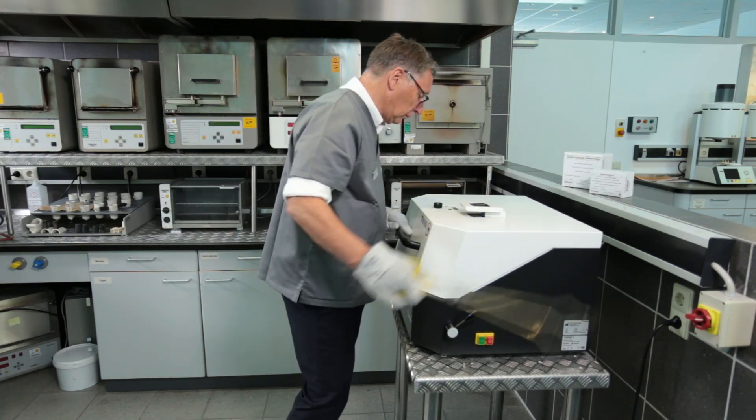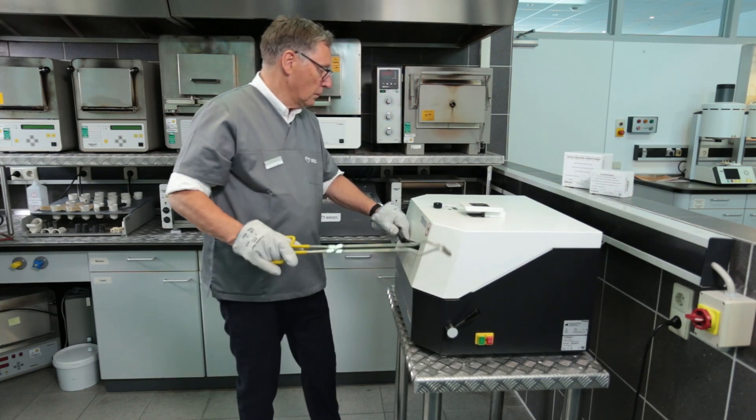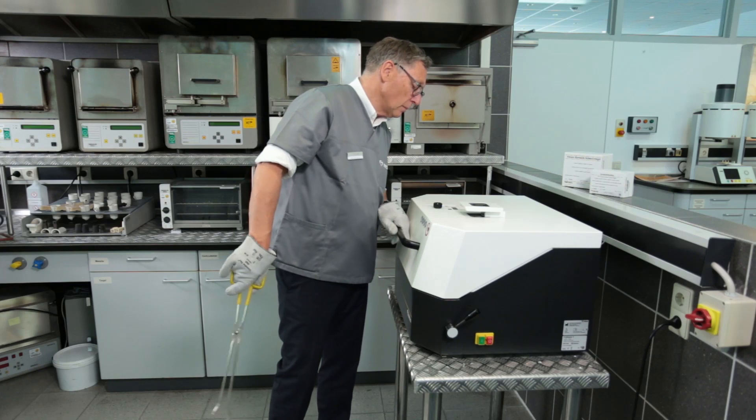The casting process lasts about 35 seconds. The machine stops automatically and releases the lid for opening. The mold can then be removed.